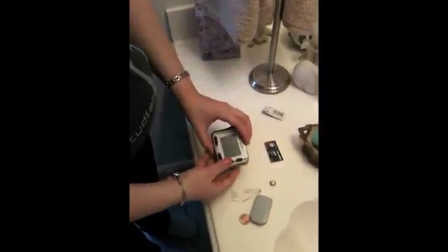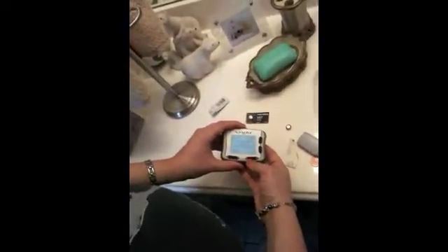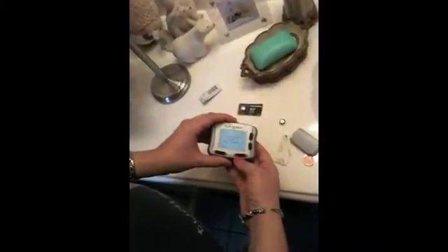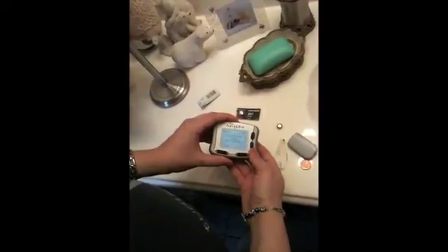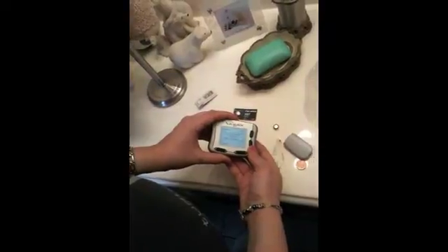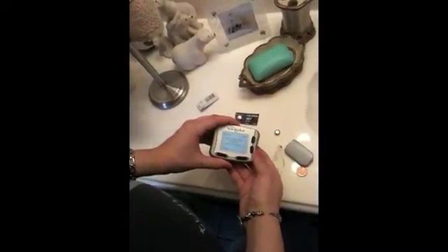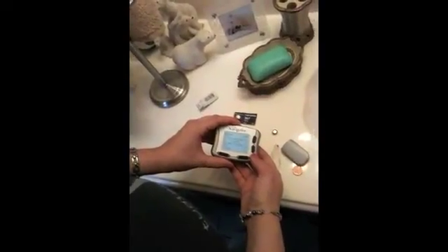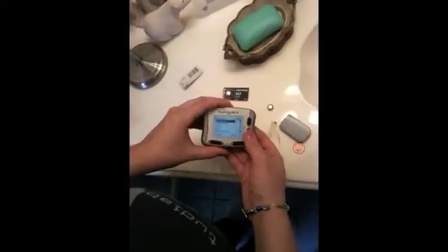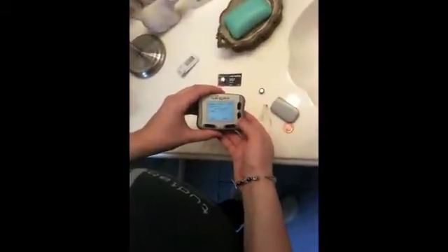At this point I want to ask my device to find the battery. I went into system, reconnect, and it should be reconnecting with my transmitter. If the battery is no good, it will not reconnect — which is why I brought an extra battery. Or if I put the battery in and did not have it placed well, it will not reconnect. Two beeps tell me it reconnected appropriately. I'll go in and look at my transmitter status — my battery shows 75 to 100 percent.